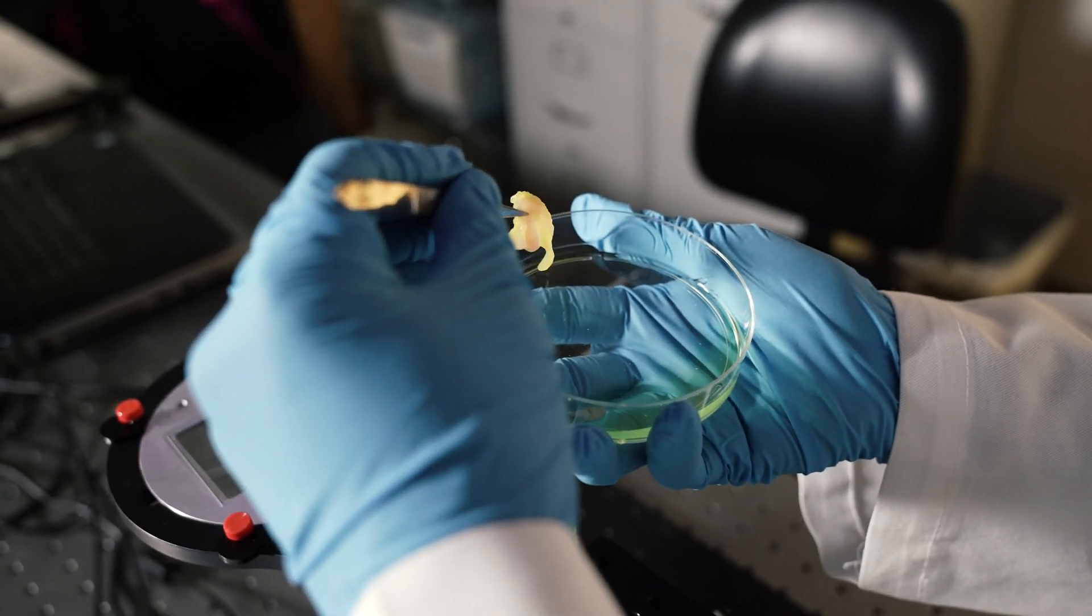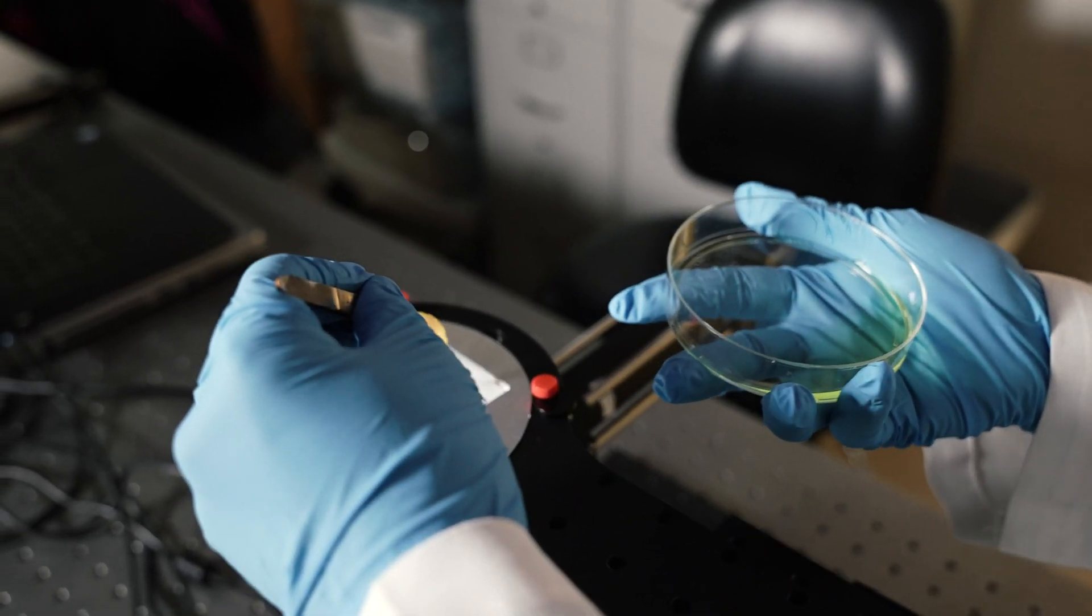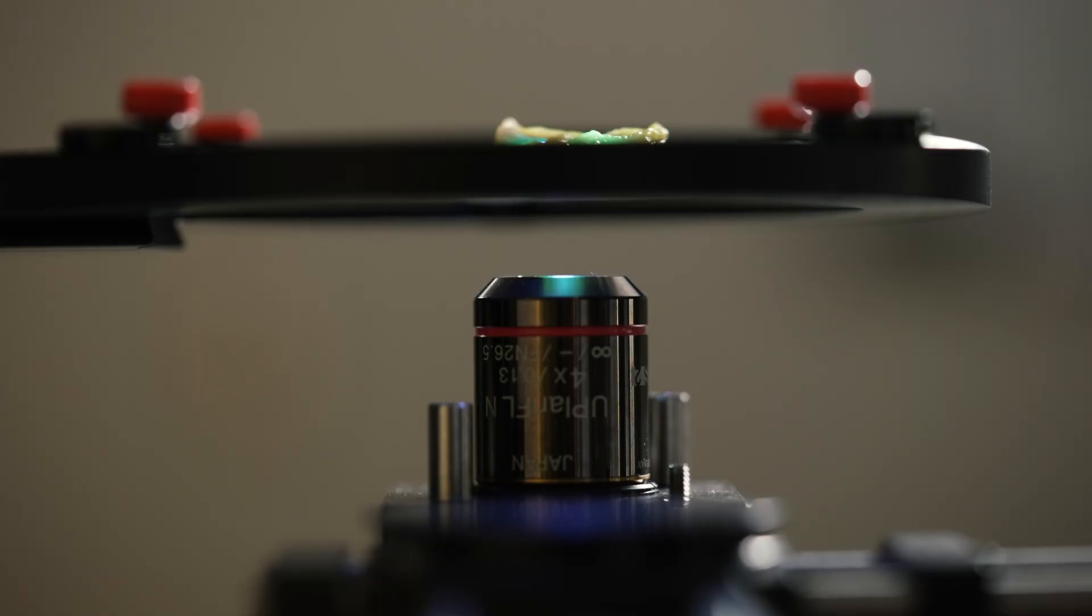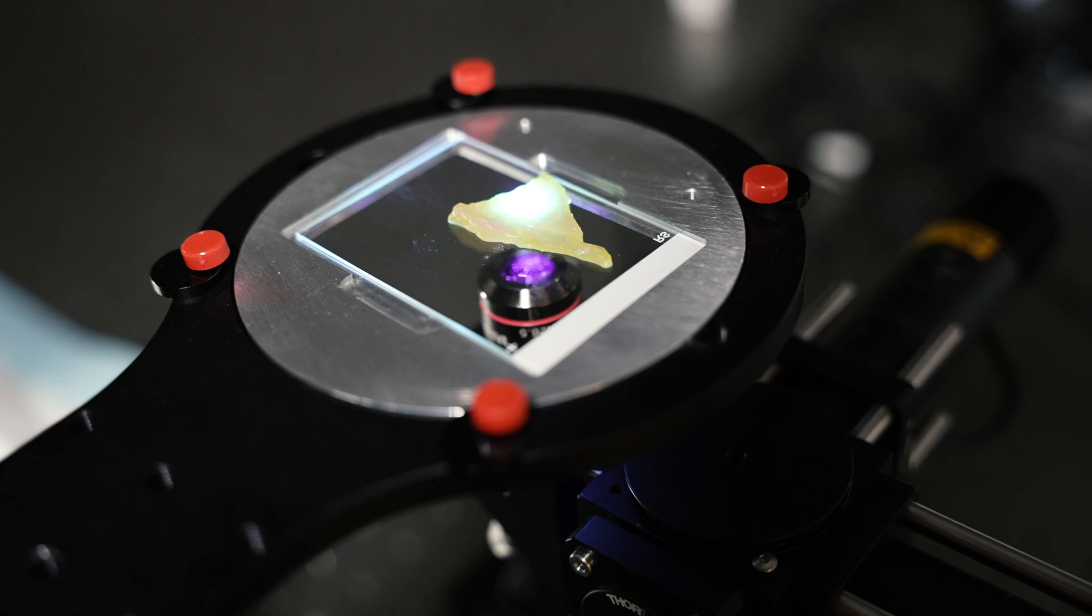Our project seeks to basically image the tissue directly. So the faster and cheaper we can do this, the easier it is for surgeons to complete the surgery.